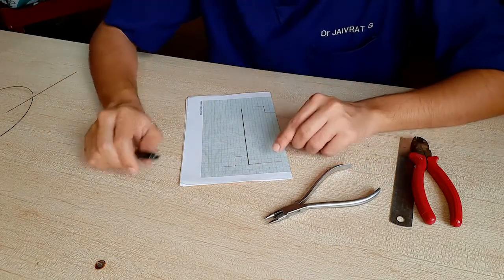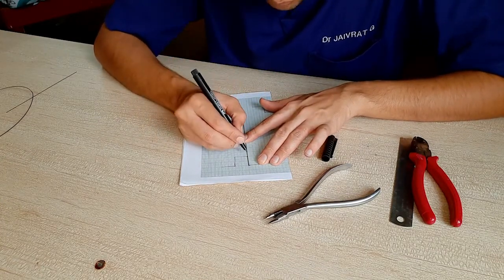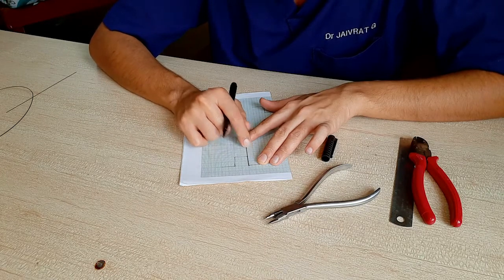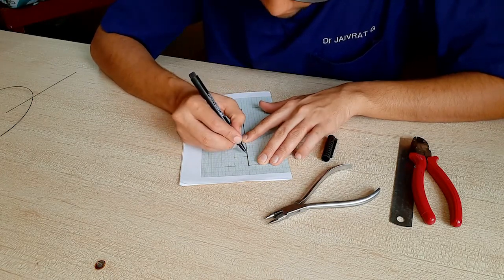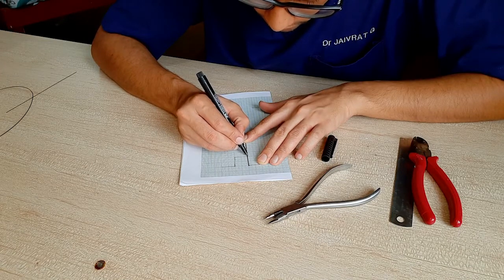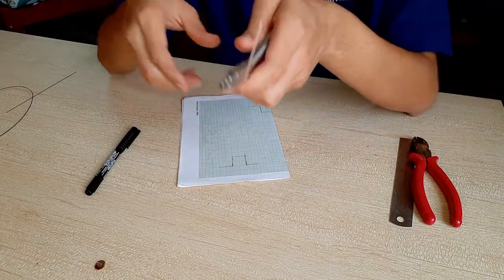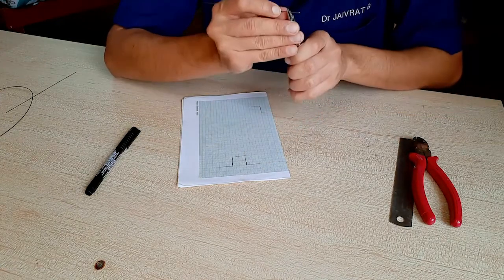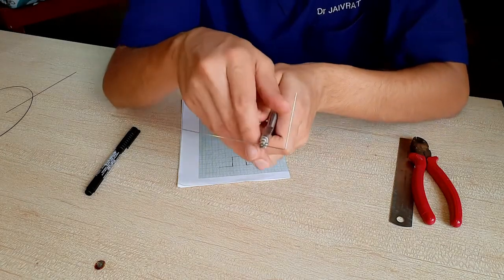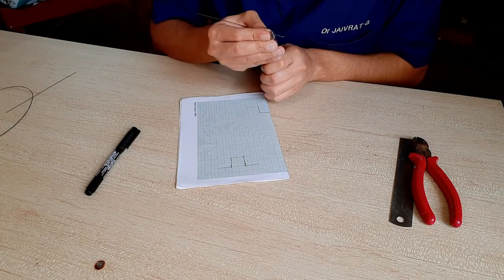Now the first bend is actually the easier one; the second bend is the more difficult one. The second is more difficult because the first one, even if you give it a head — that's the starting bend — so you can moderate it. But for the second bend you can't do that. Okay, so you again make the point where you want the bend, and we do the same thing. I hold the plier just one millimeter before the actual point, and then I will again bend it.